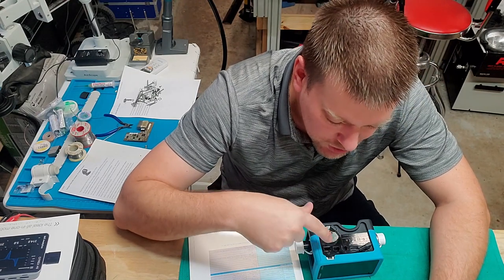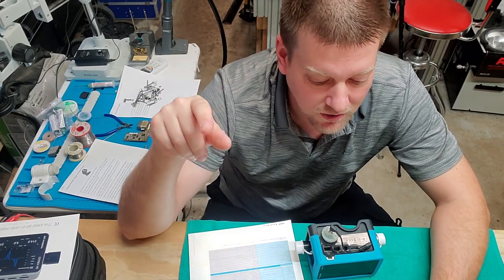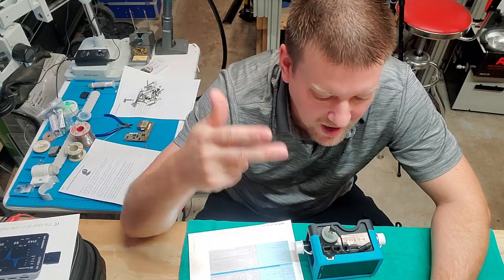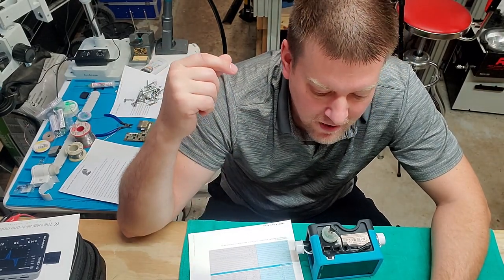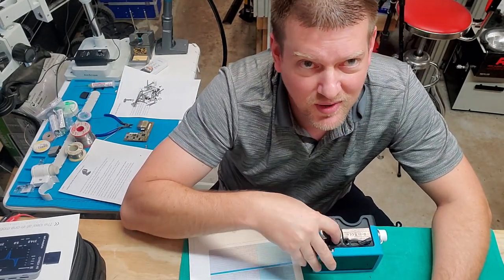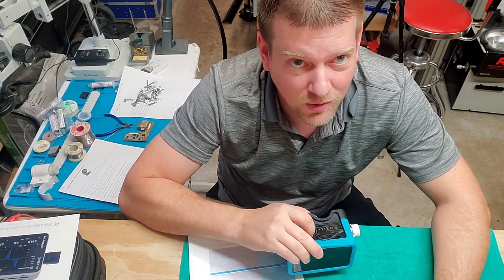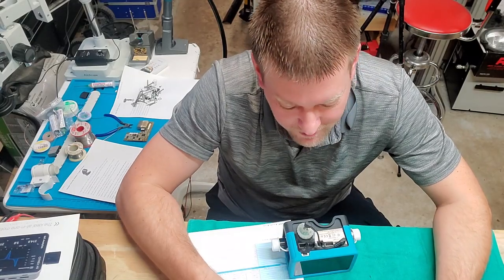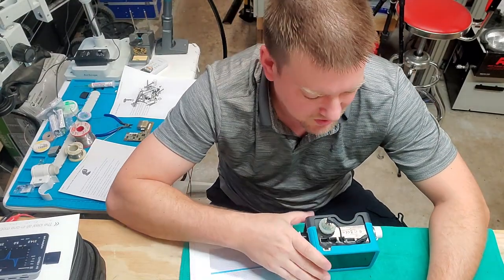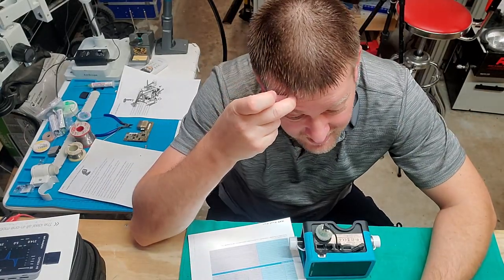You can actually hook this device up to a multi-gas analyzer called the OR-703. It can measure CO2, N2O, halothane, ISO, ENF, sevoflurane, and desflurane — all sorts of multi-gases. If you work on anesthesia machines and want to test vaporizers, this device can do it all in one. Leave it connected to the machine, check it for leaks, check the accuracy of the dial. The OR-703 attachment connects up to the ports on the top.